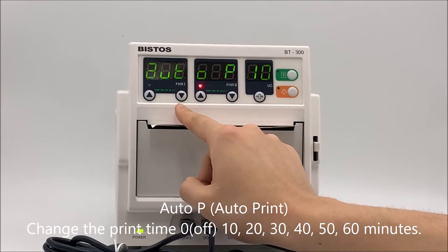Auto print change the print time off 10, 20, 30, 40, 50, 60 minutes.